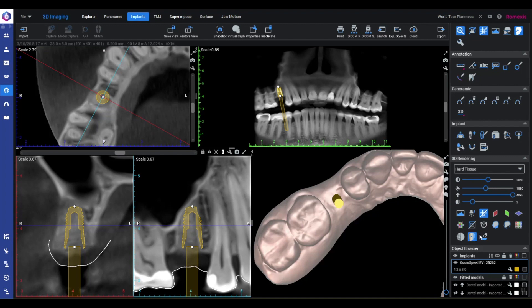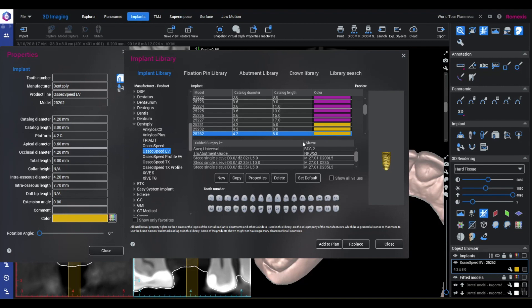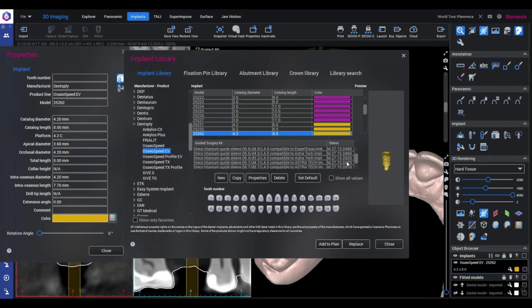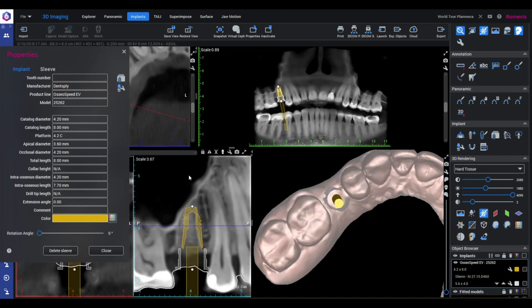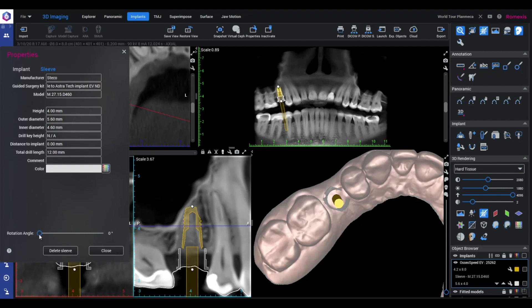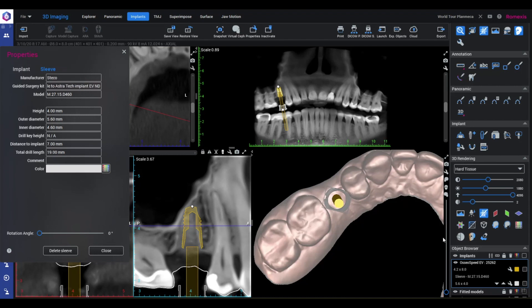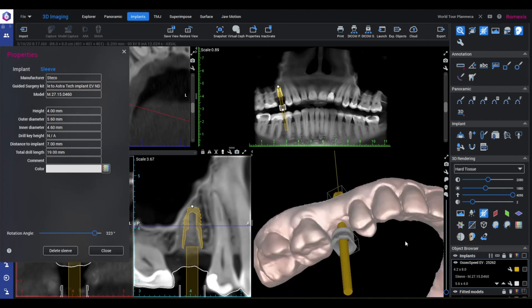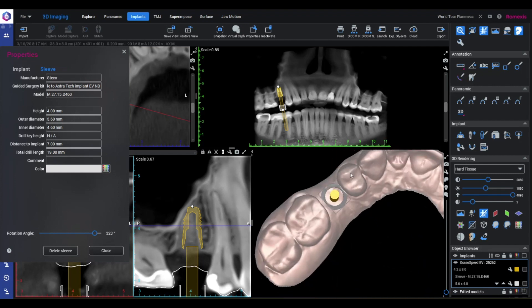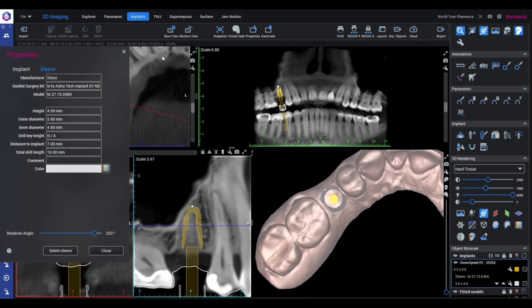However, if we want to proceed and fabricate a surgical guide for guided implant surgery, the next step is to add a surgical guide sleeve to the implant. All we have to do is choose the appropriate sleeve from the menu that corresponds to our guided implant surgery kit and define the ideal drilling for the site and position. There's a lot of flexibility built into this guided system — we can do anything from a pilot guided case, where we just want to establish the initial osteotomy position, to a full arch case requiring stabilization pins. For a single unit case like this, we can even rotate the sleeve to better fit the site, and also define implant timing if compatible with your implant system, especially if you want to integrate immediate temporization or custom healing abutments.